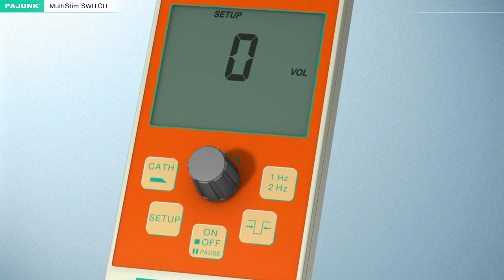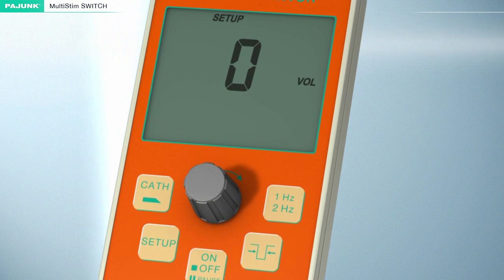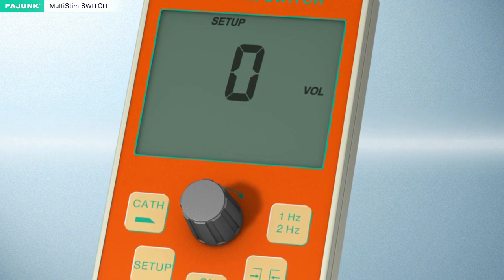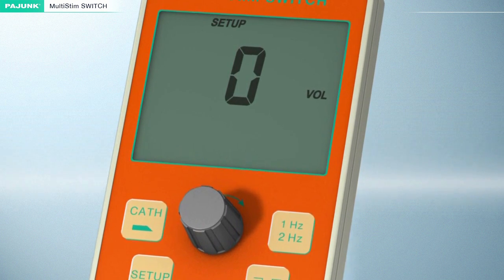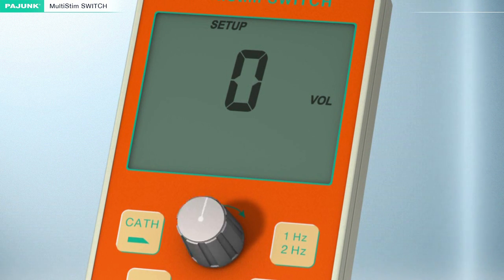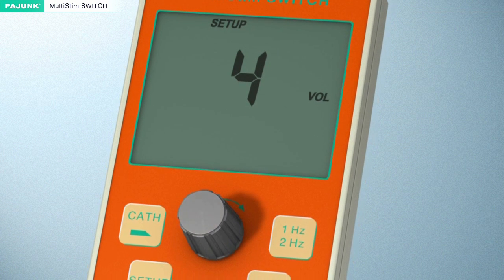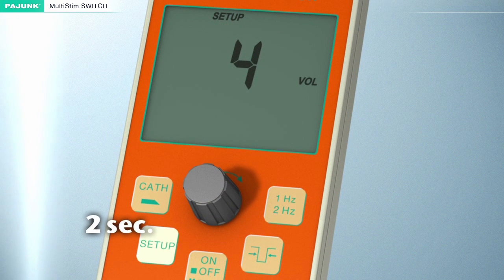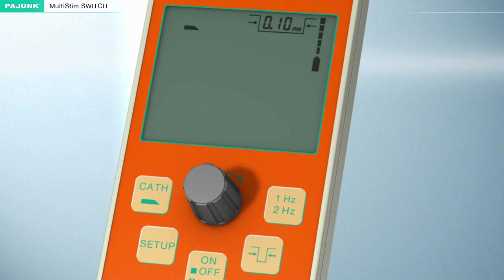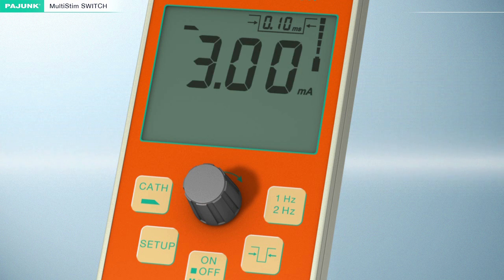Setup level 1. The volume of the warning and monitoring sounds can be adjusted in level 1. The scale ranges from 0 — that is, monitoring and warning sounds are turned off — to 4, which is very loud. The adjustment of the volume is carried out by turning this knob. The setup button must be pressed for at least 2 seconds to store the selected value permanently. A monitoring sound will be emitted upon successful storage, then the device will switch to pause mode automatically.